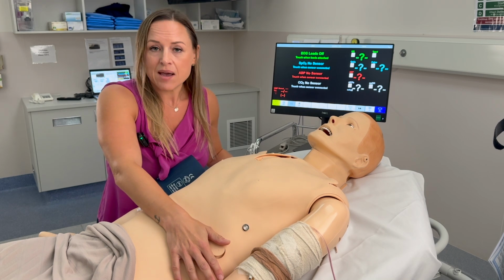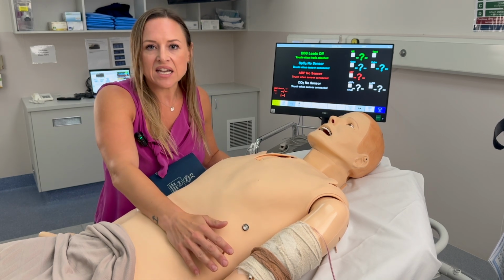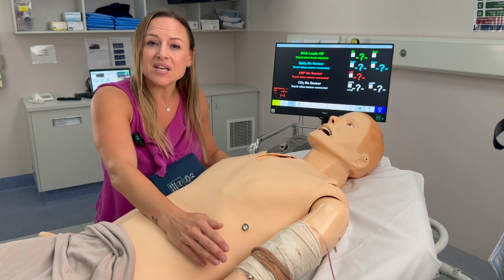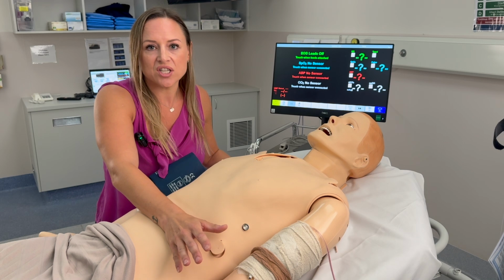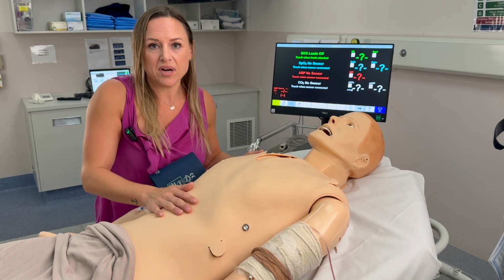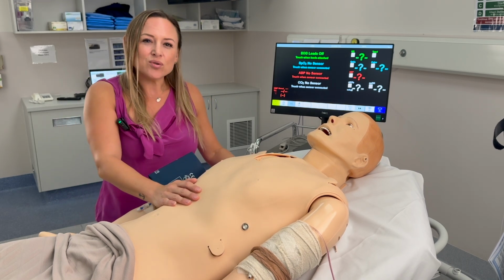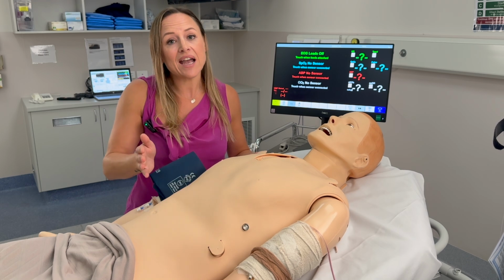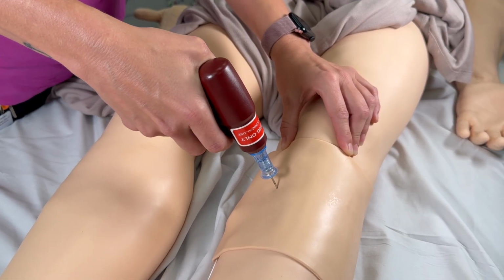Intravenous access can be obtained, although frequently you'll get given a false cannula. Medications and fluids can be administered through that cannula, so you can use appropriate dosages and rates. If you want to get blood, you can also draw back blood for blood gases and results. If you're unable to get IV access, you can go for an IO, but only on the left proximal tibial landmark.